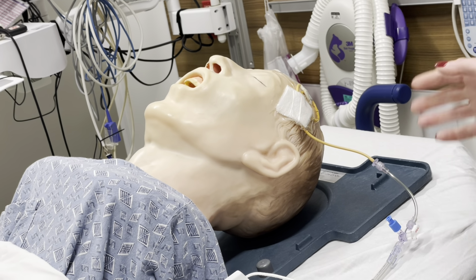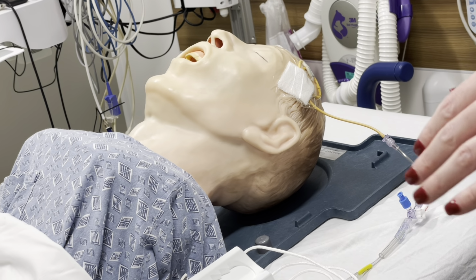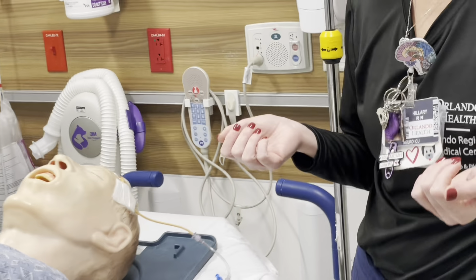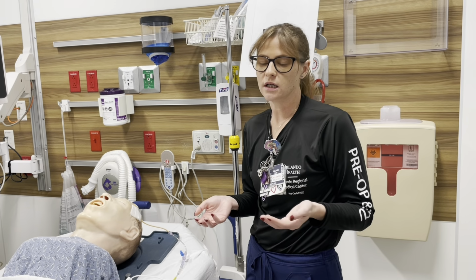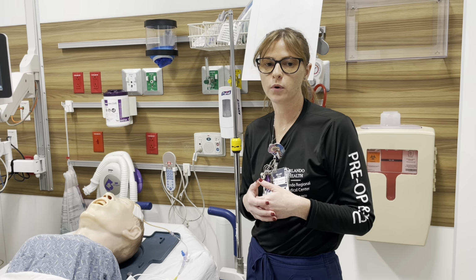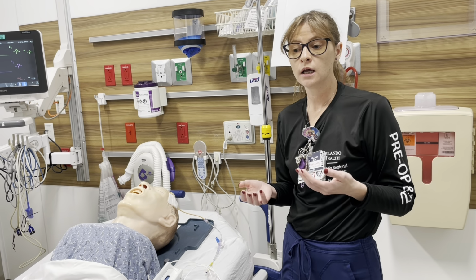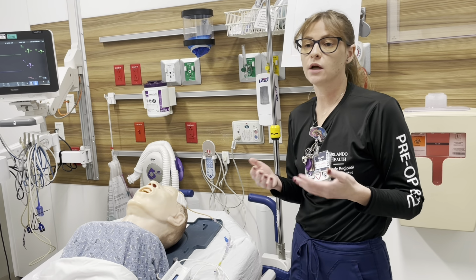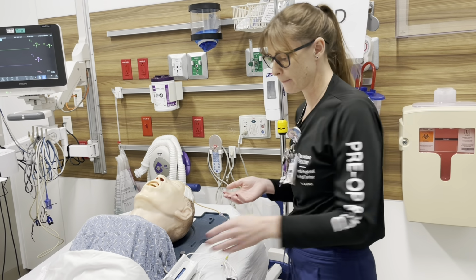So once you get your drain and you know that all of your stopcocks are off, you're going to go over to the computer, look at your order sets, and figure out what your physician orders are and what type of drain you're dealing with. So for this in-service, we'll call it an EVD, where it does actually sit in the ventricle, and the purpose is to drain CSF and monitor intracranial pressure, or ICP, so that you can make sure that you're staying within the parameters that the doctor has set and make sure that you're monitoring your patient appropriately.